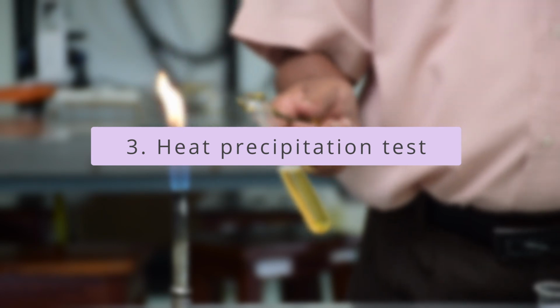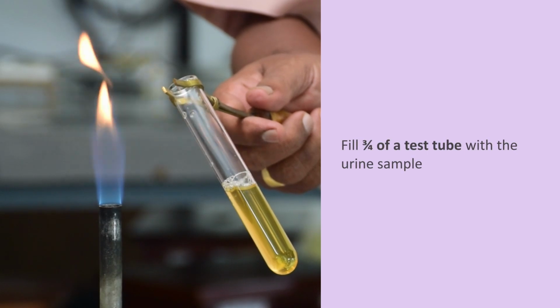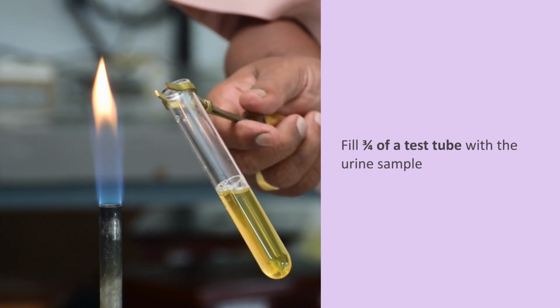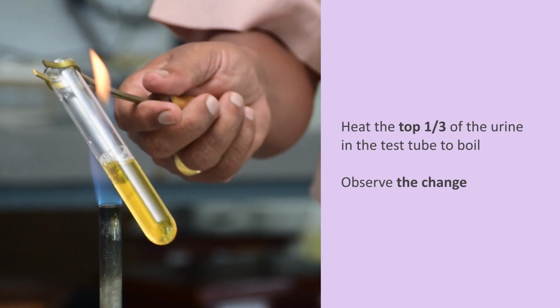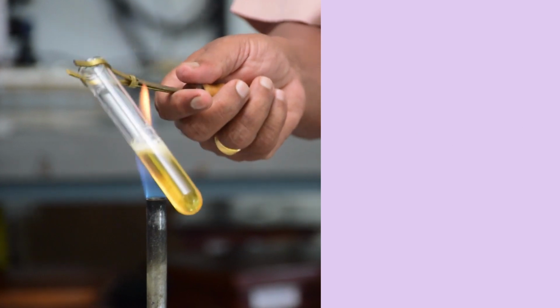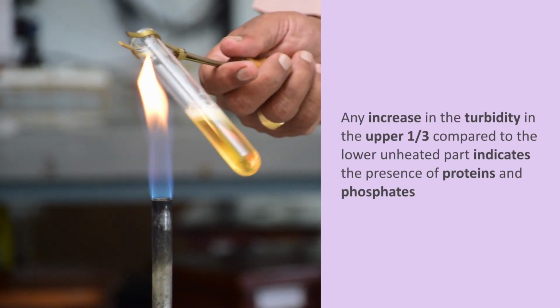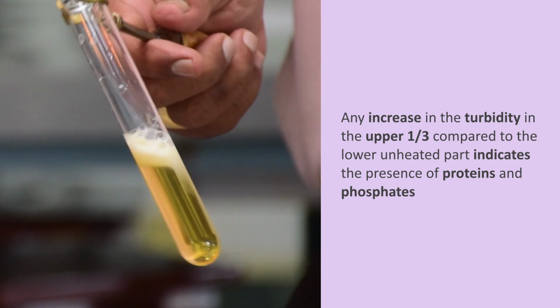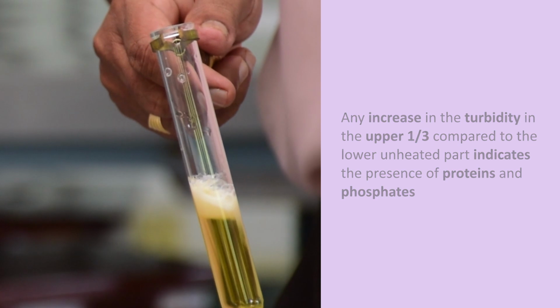Moving on to the heat precipitation test, which is performed to detect proteins in urine. Fill 3/4 of a test tube with the urine sample. Heat the top 1/3 of the urine in the test tube to boil. Observe the change. Any increase in the turbidity in the upper 1/3 compared to the lower unheated part indicates the presence of proteins and phosphates.